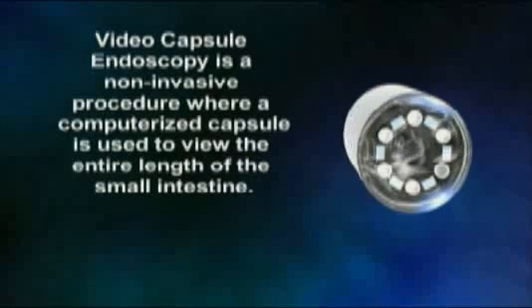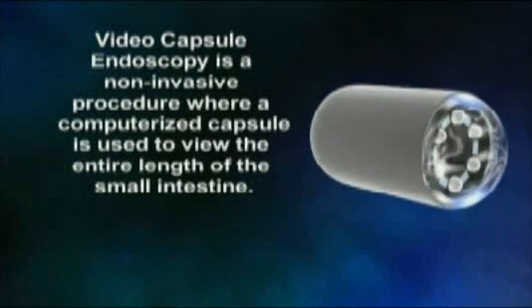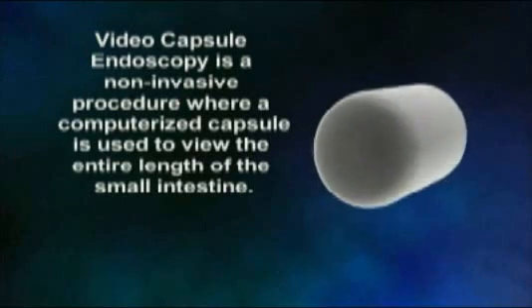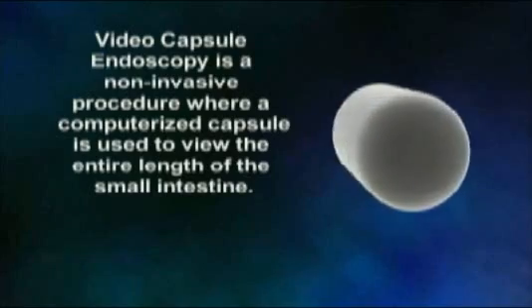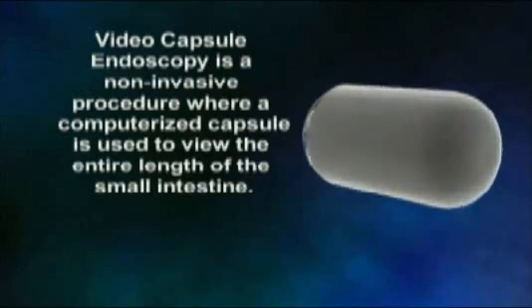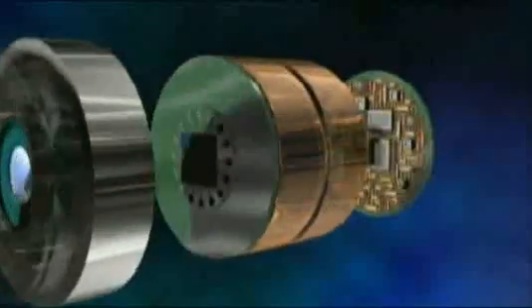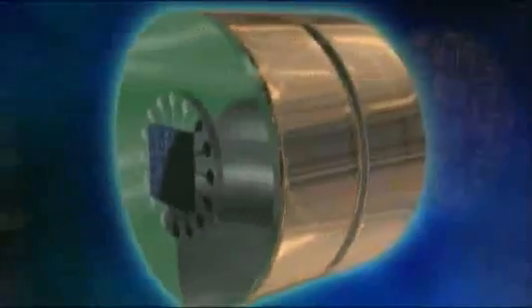Video capsule endoscopy is a non-invasive procedure where a computerized capsule is used to view the entire length of the small intestine. The capsule is about the size of a vitamin and contains a transmitter, a battery, a color video camera, and an LED light source.